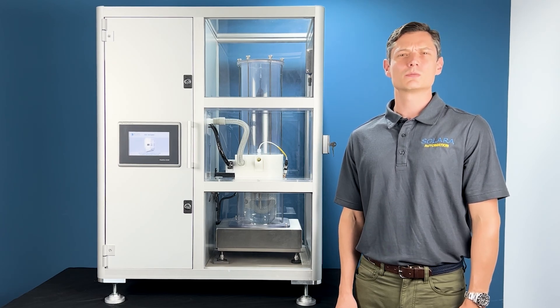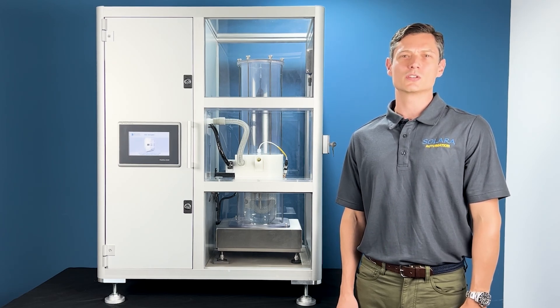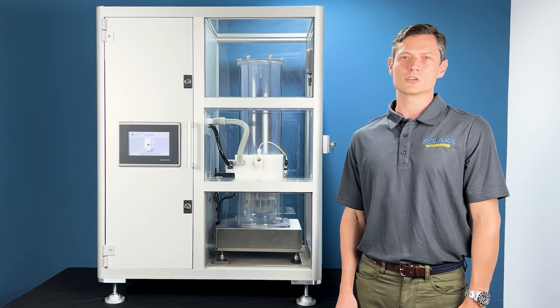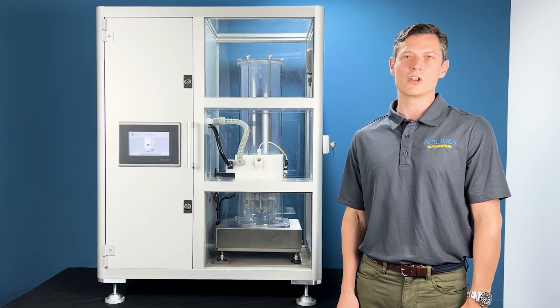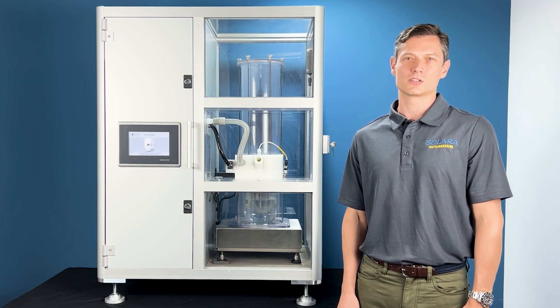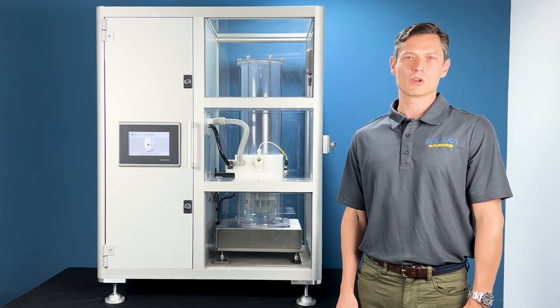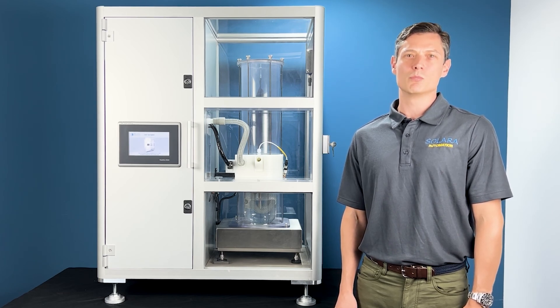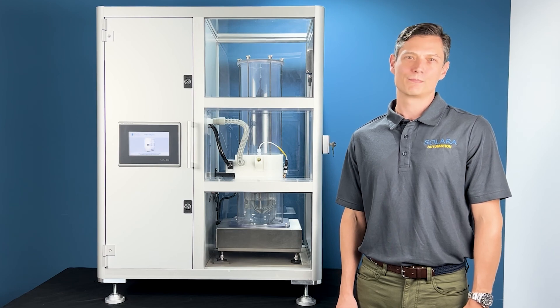These systems are designed for testing and evaluation of humidity and moisture exchangers in accordance with ISO standard 9360. The system simulates human breathing and measures the mass of moisture loss over time.